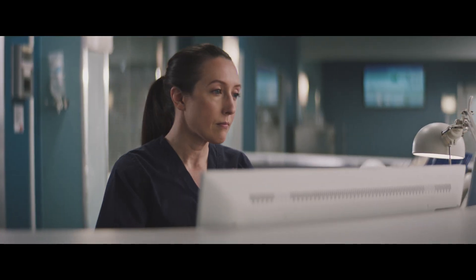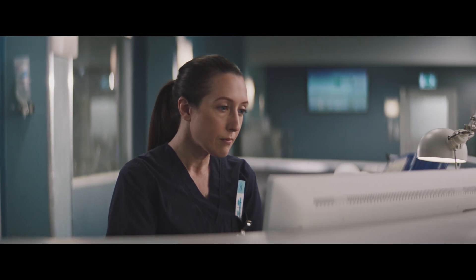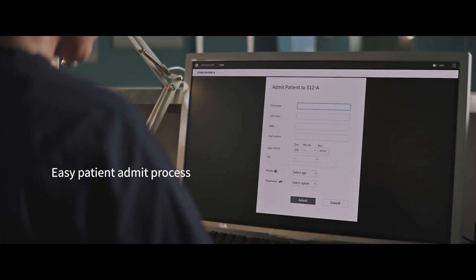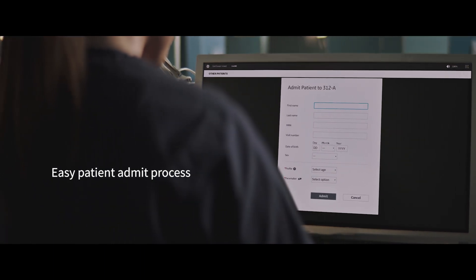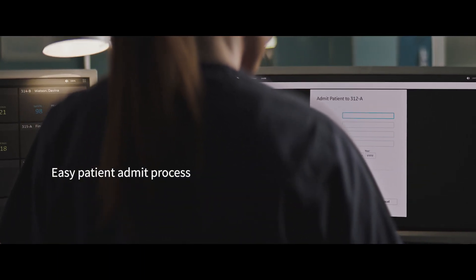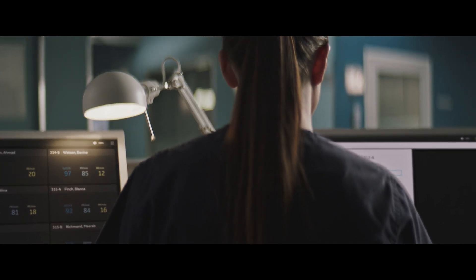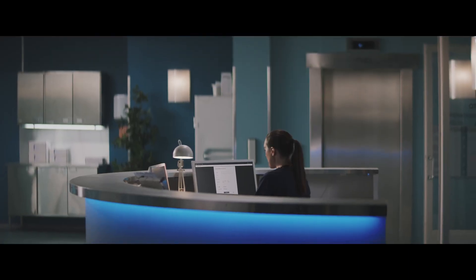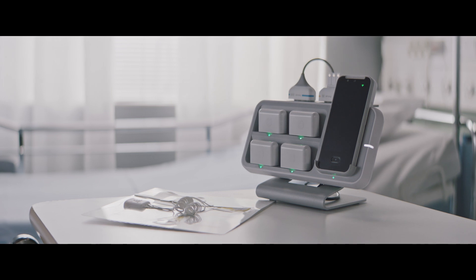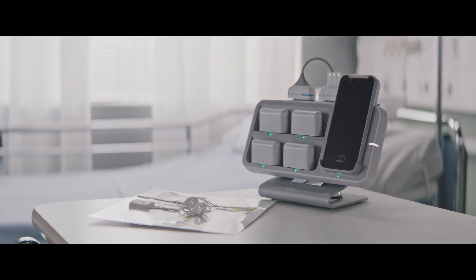The Portrait Mobile workflow begins at the Portrait Central Viewer, where a nurse admits a patient's demographic data or a patient is auto-admitted from an ADT feed. This step adds the patient to the monitoring system, enabling the clinician to assign any available Portrait Mobile patient monitor, also known as the hub, to the patient.